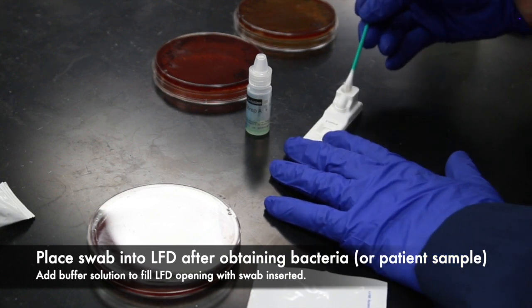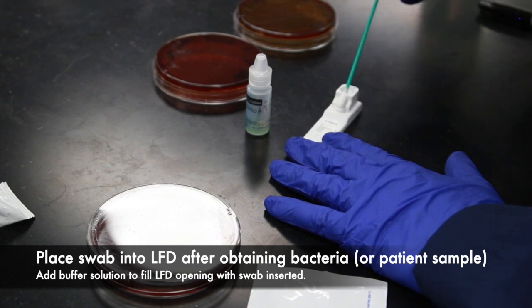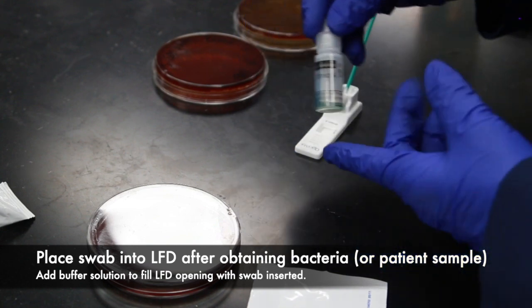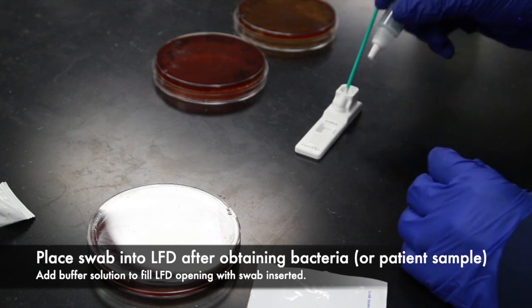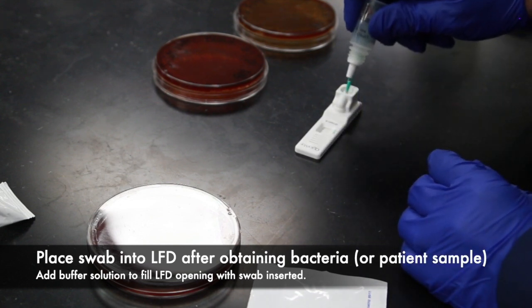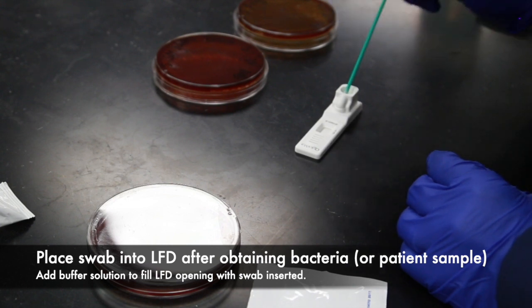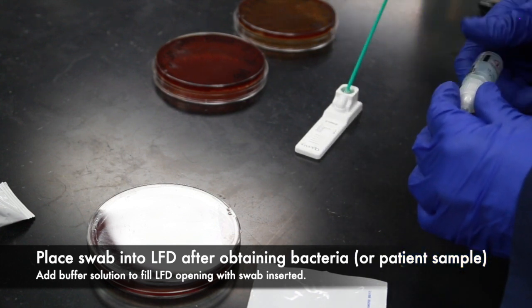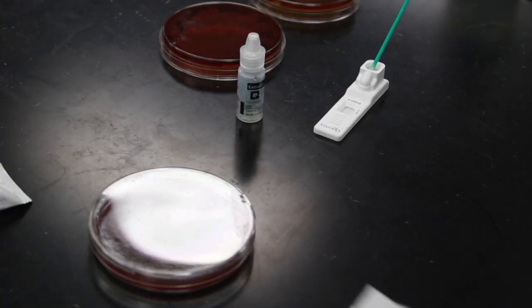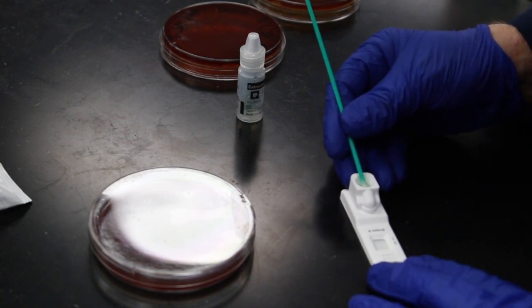Now place the swab in the opening at the top of the lateral flow device. The swab should fit snugly and stay inside the lateral flow device while running the test. Take the buffer tube and carefully drop all of the buffer solution into the opening of the LFD on top of the swab. If the buffer solution is not running all the way down into the tube, you may need to gently pull the cotton swab out and then push it back in just two or three times.